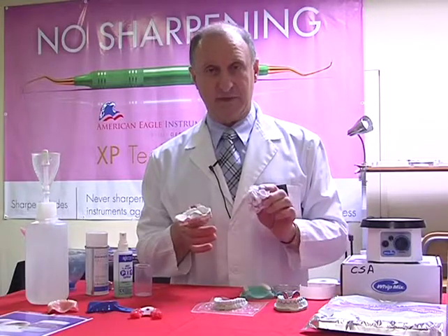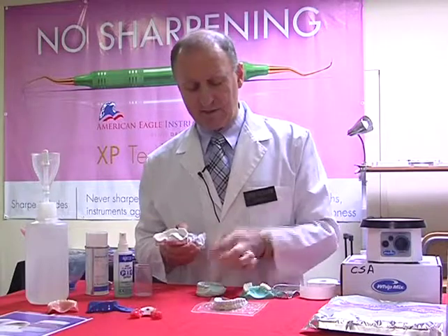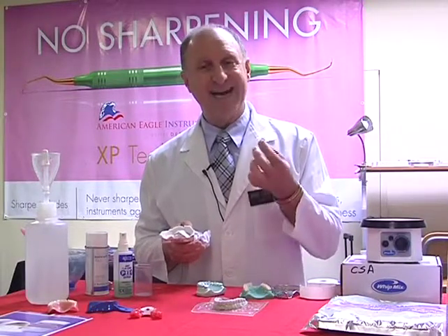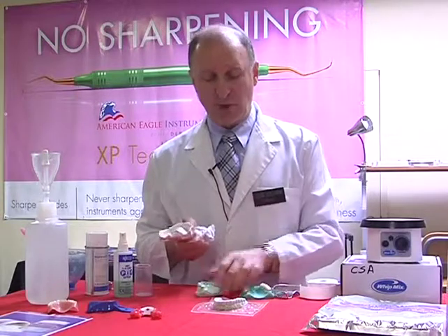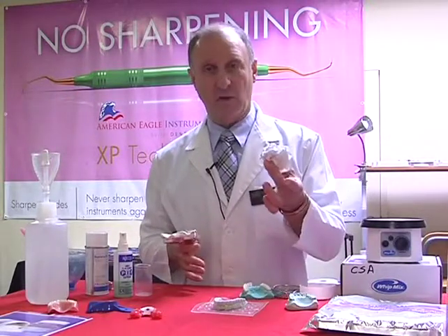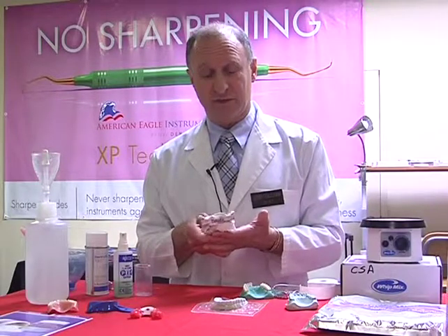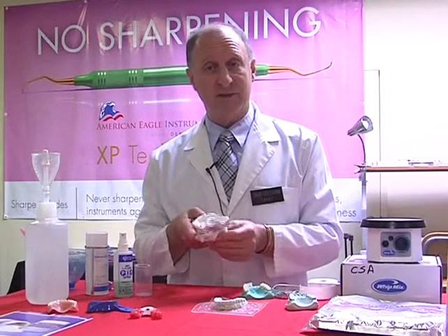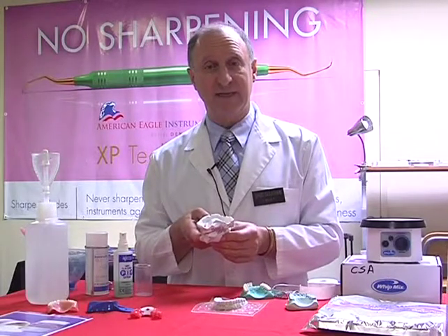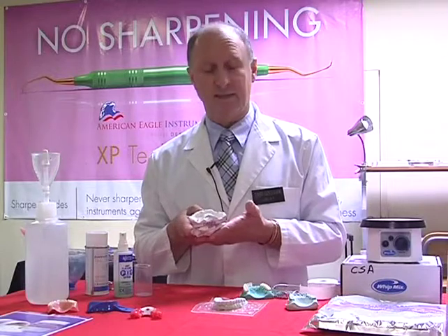So that's no good, because otherwise what would happen is when we pour up a model, we'll touch the surface of the model, and where it hadn't set correctly, we would have a thin residue of stone on our fingers. What we do need to do is wet the paper towels, place it underneath the impression, so not wrapped or not on the surface, and then we can put it into a Ziploc bag or a Tupperware type of container, something that's airtight, and it will hold it for 4 days stability.